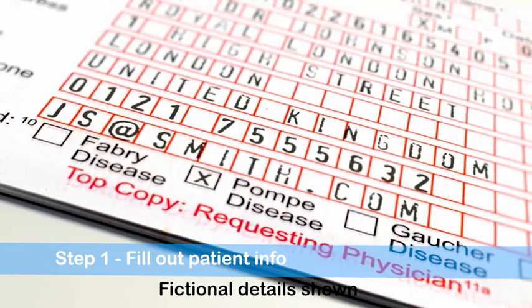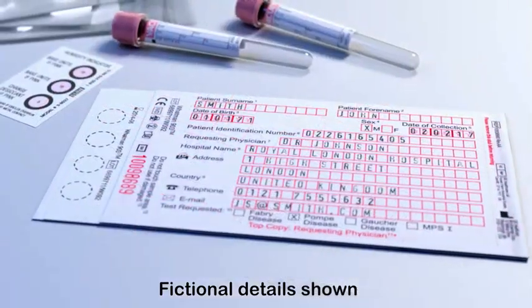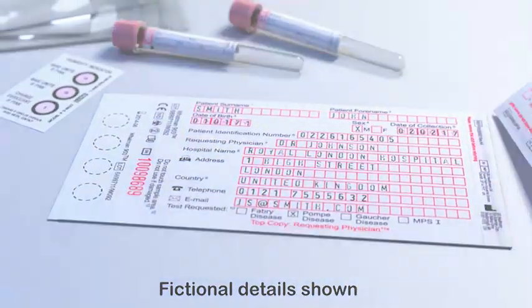Firstly, all data fields on the DBS card must be completed for each patient. The top card should be removed and kept on file.